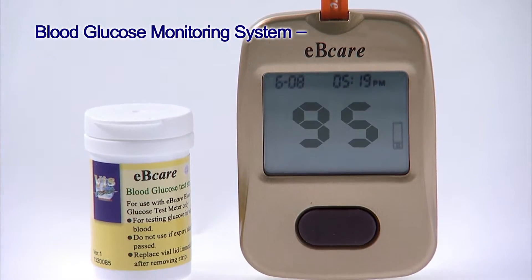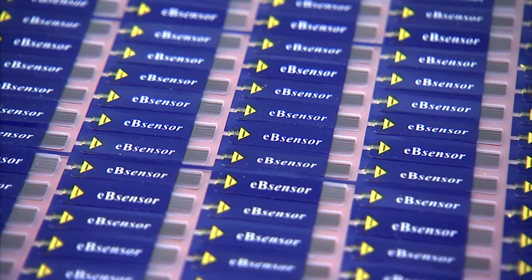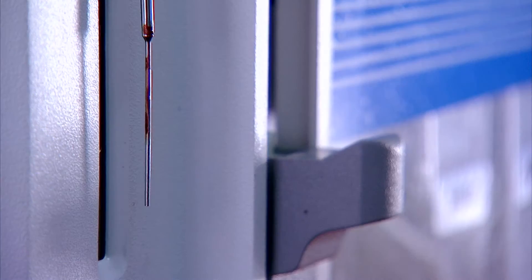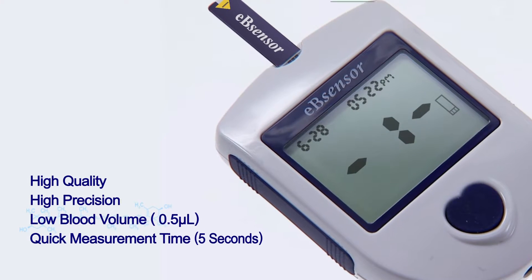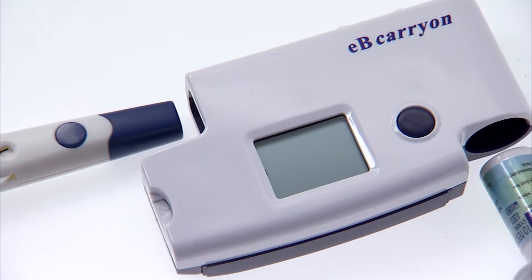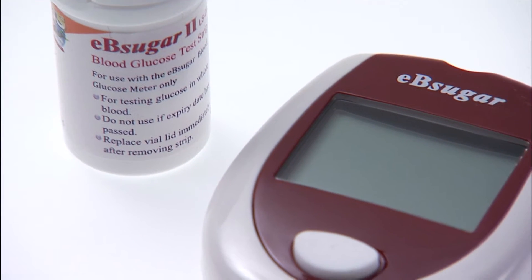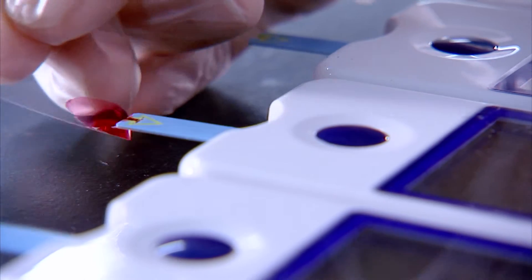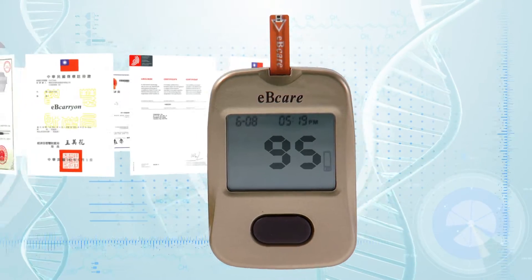VisGener has built on its experience in blood glucose testing by integrating a unique enzyme recipe onto the reaction area of an electrochemical blood glucose test strip design to develop low blood volume, quick response EB electronic blood brand blood glucose monitoring systems. These have met requirements for multiple international certifications.